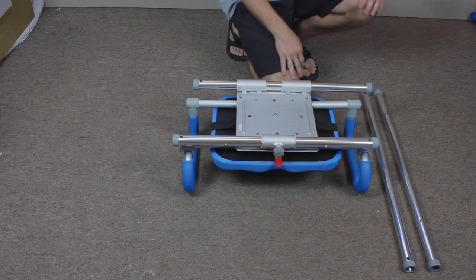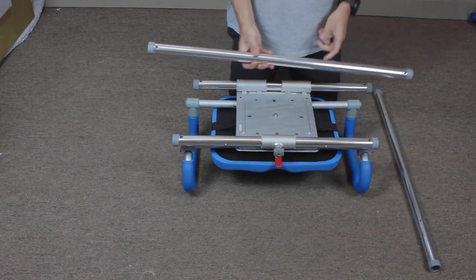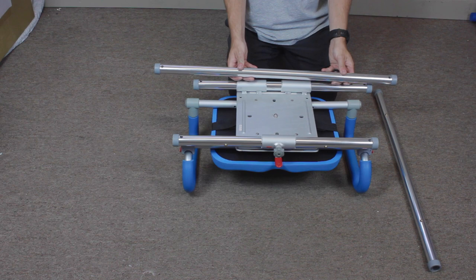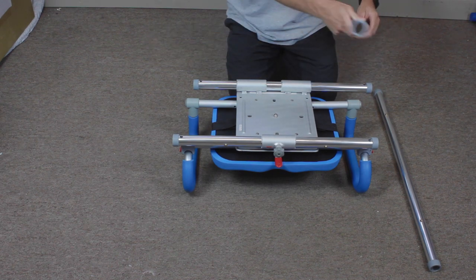Here's a quick bonus for you in case you're one of our customers that has purchased the horizontal rail extensions in either the 4 inch or 8 inch extension.